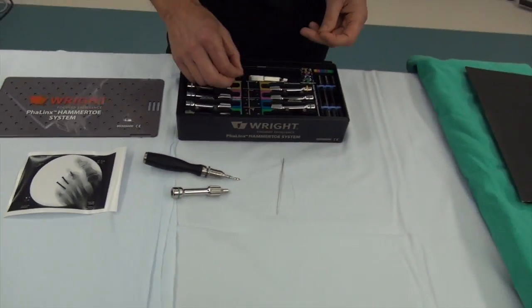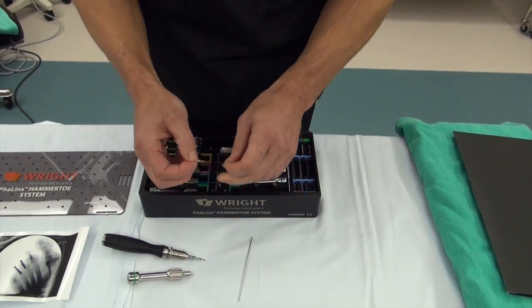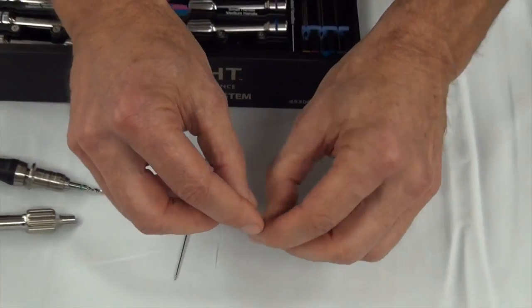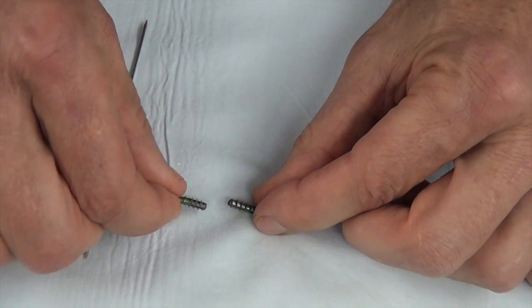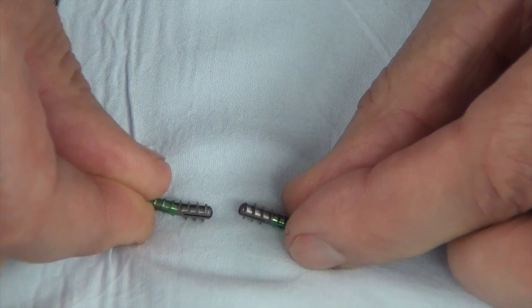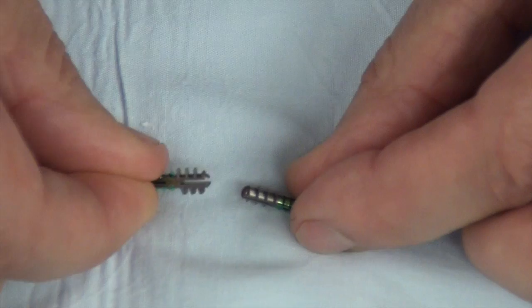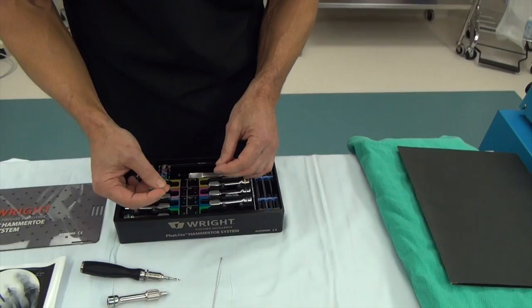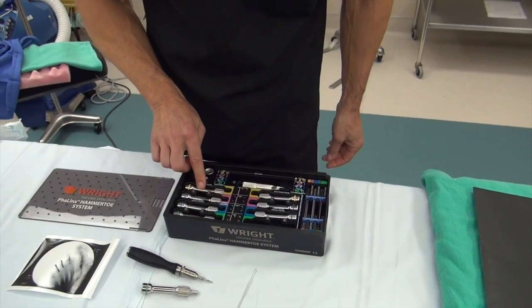Other added features of the set include some angled ones. For example, this green one on this side is straight — it's that straight. And from the side, this one is slightly angled, you can see it angled this way — a little bit angled downwards. So if you want the toe to be a little more angled instead of straight, you have the angled option versus straight, and they're separate angled hand pieces.